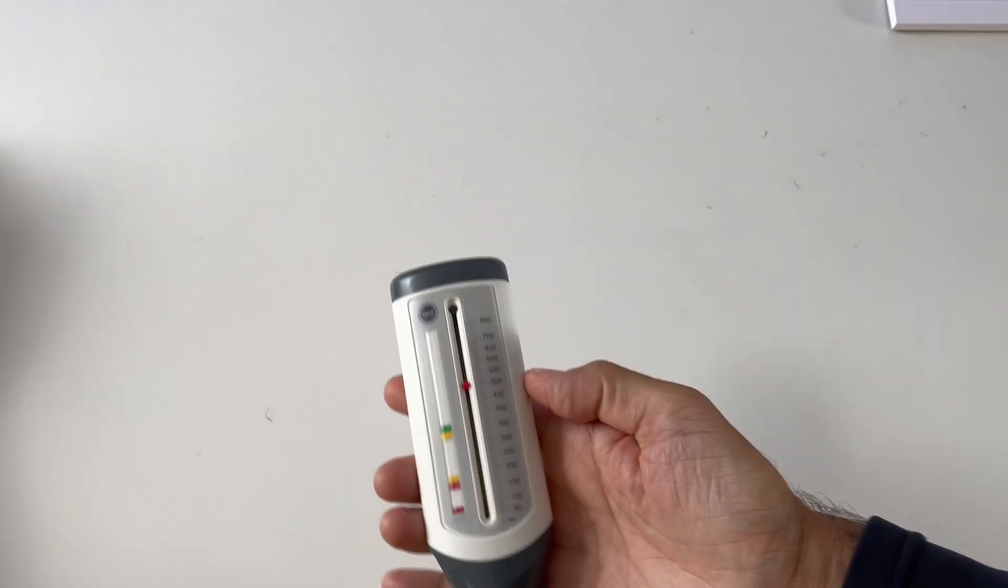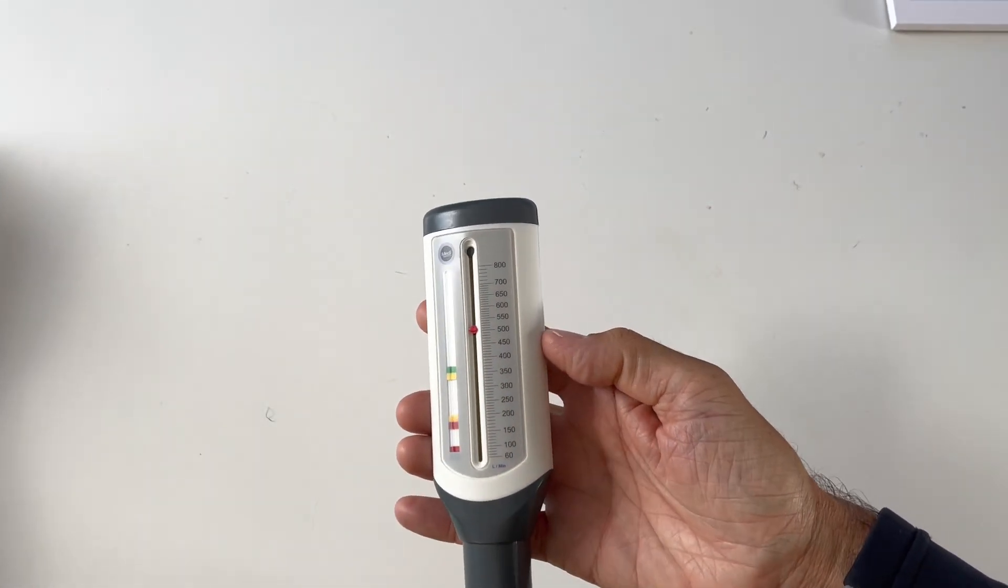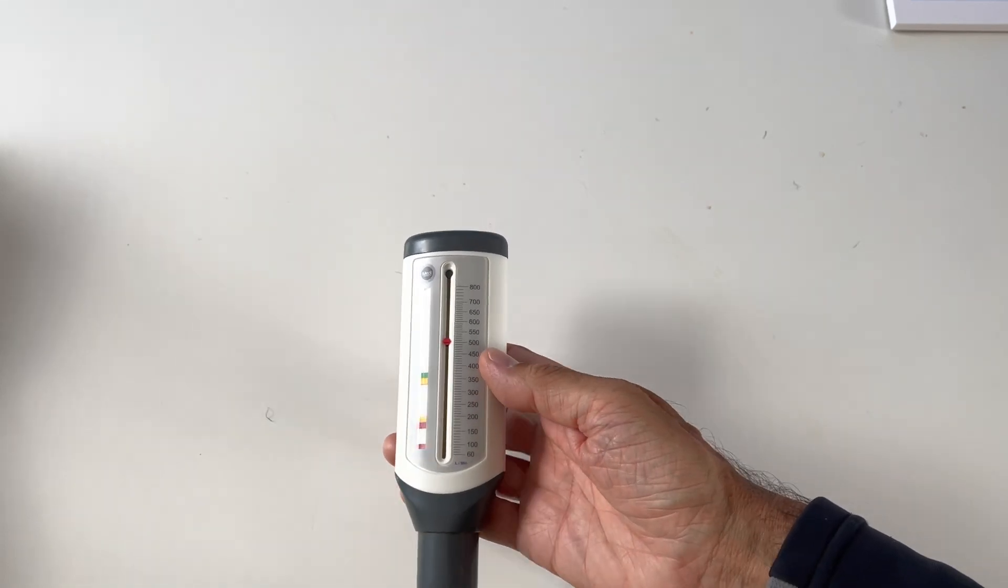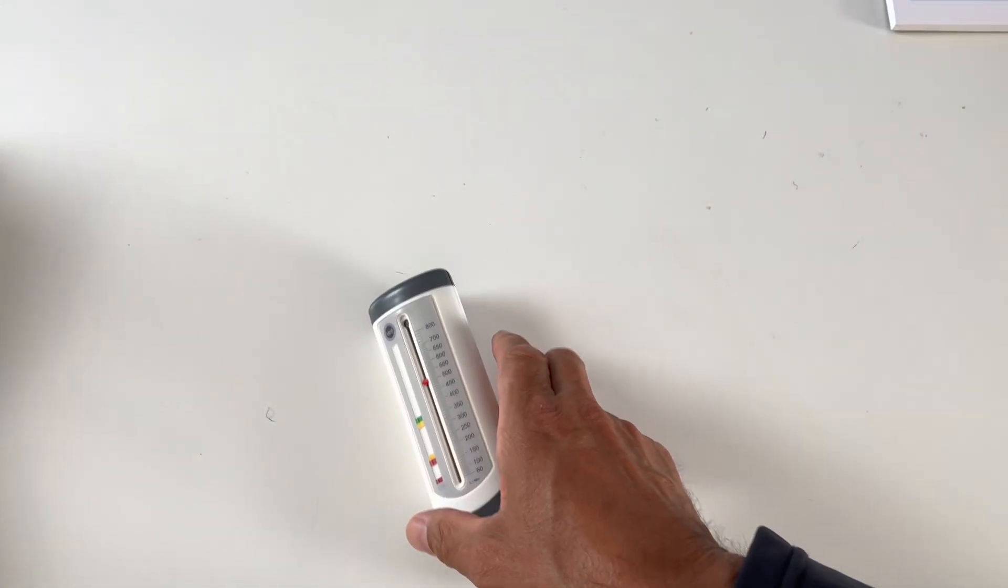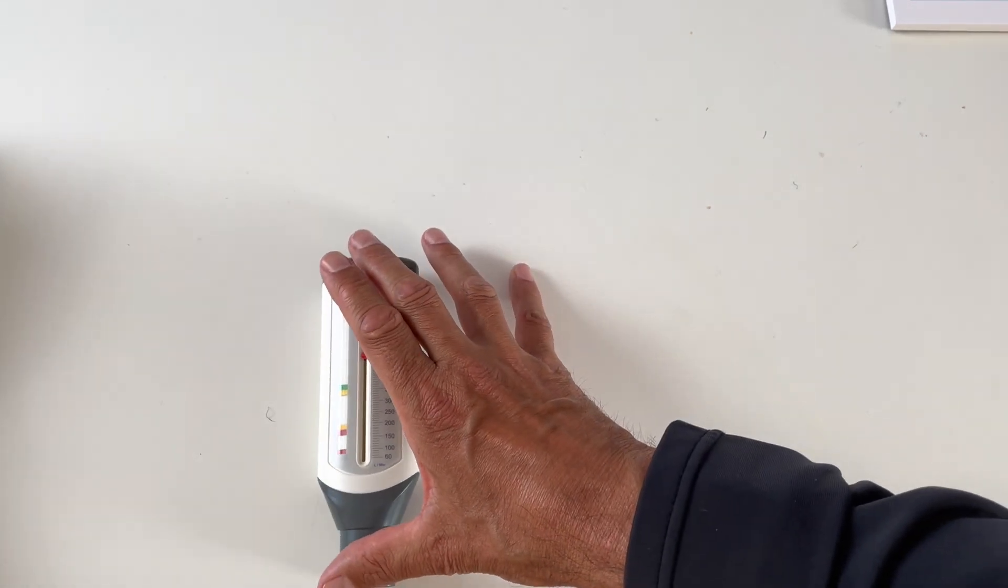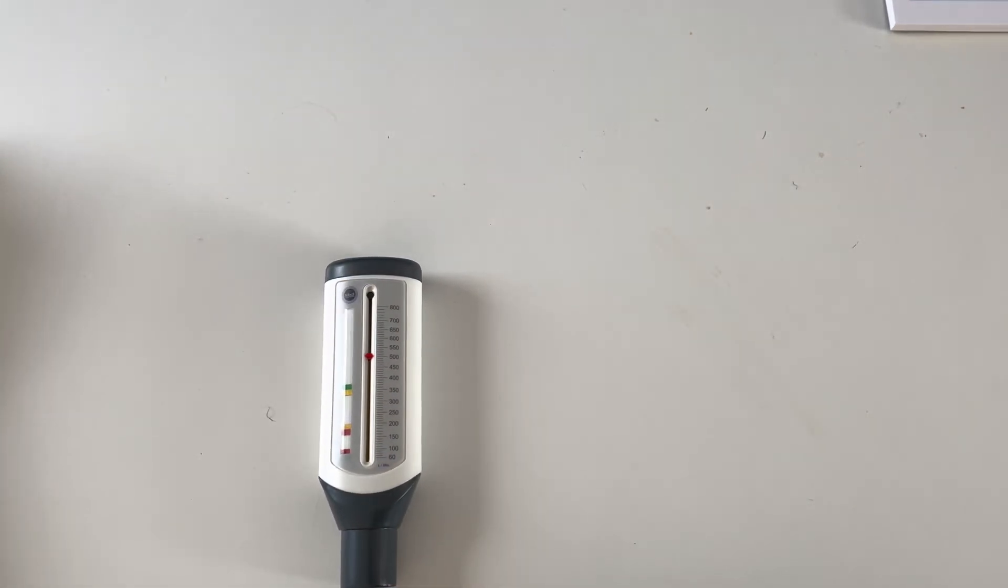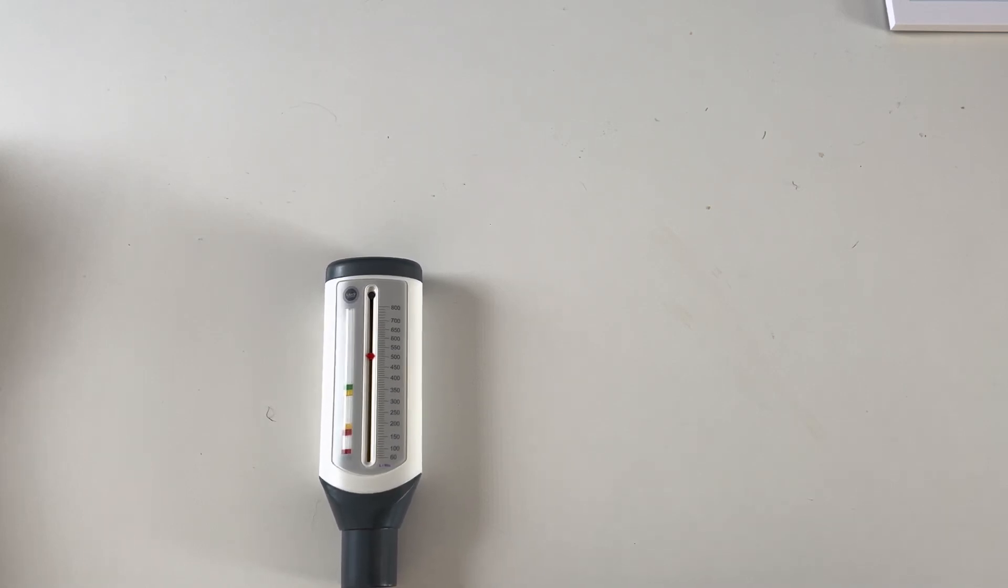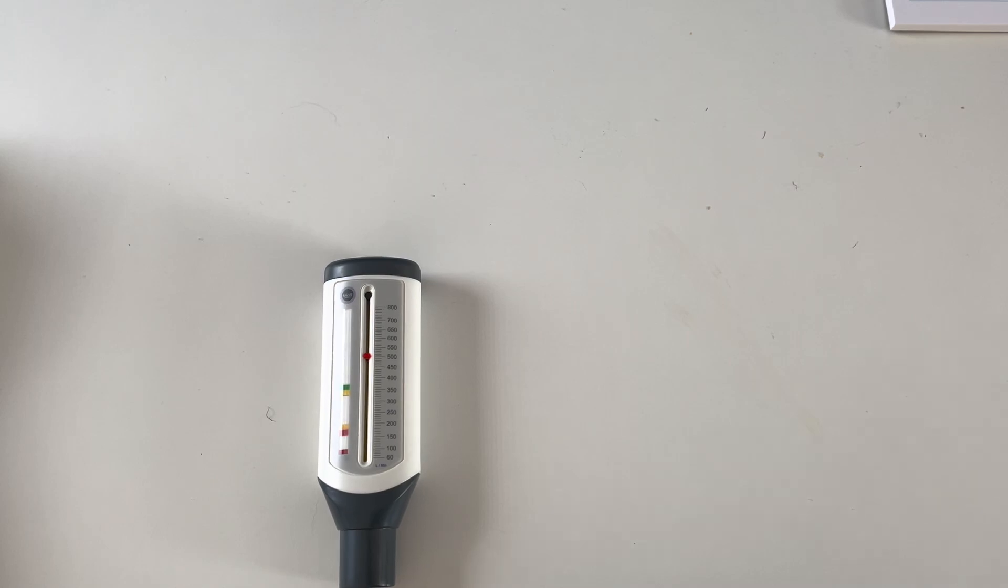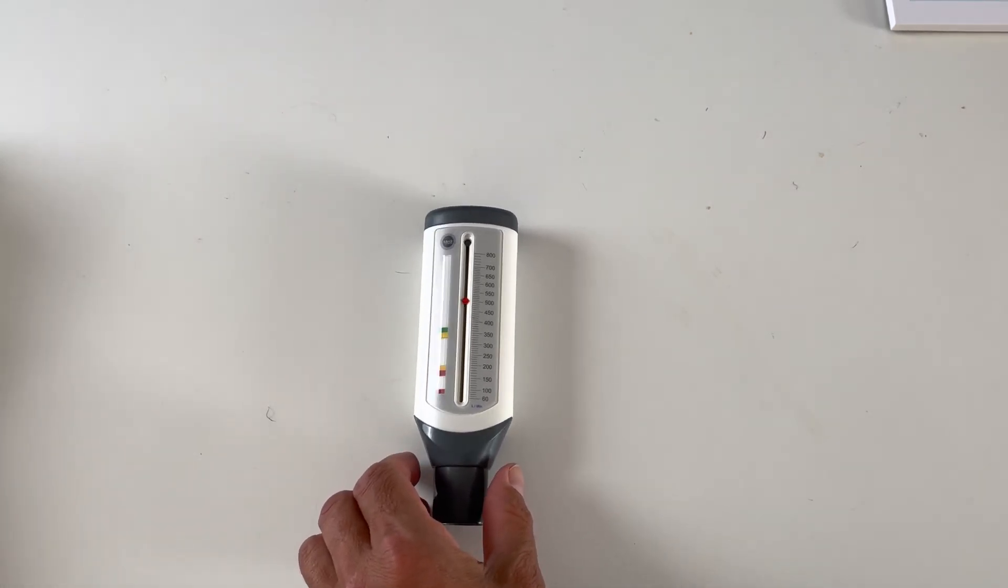And unfortunately, you're going to see the terrible result that I've got, well terrible for me, is that I'm sort of 500 and something, which is very low. If you look at my age, the fact that I'm genetically a man, and even though I'm quite short, the number should be over 600, and it isn't. That's at the moment, that's not when I'm having an asthma attack, when it would be substantially lower.